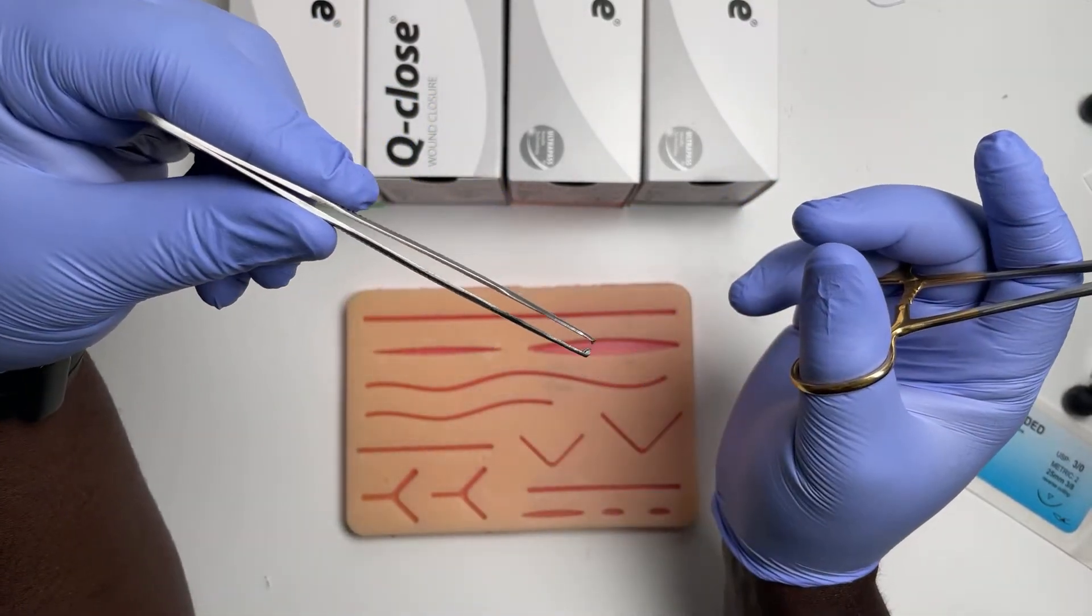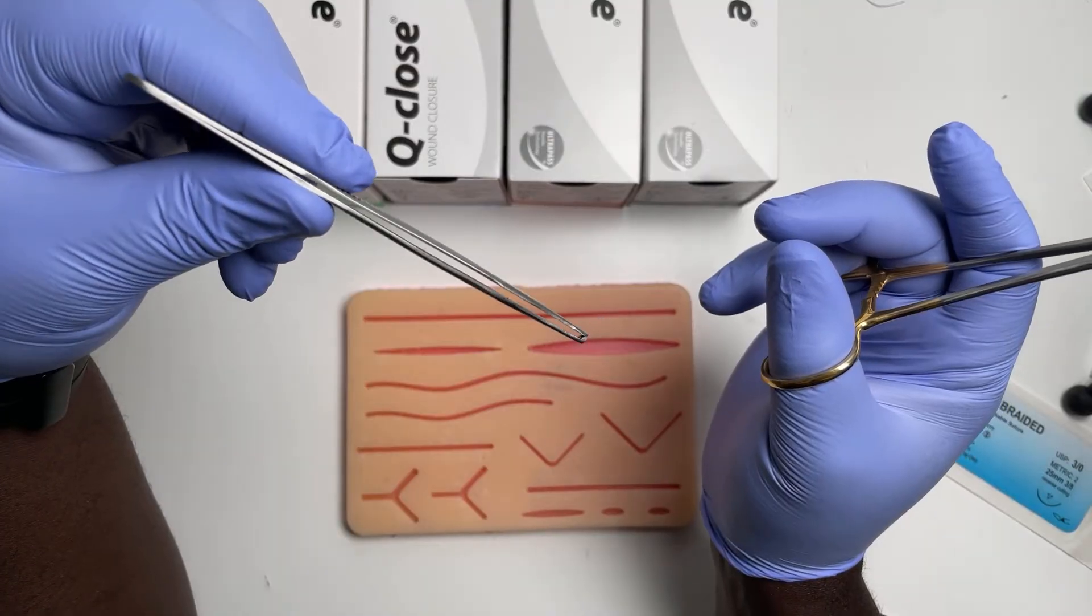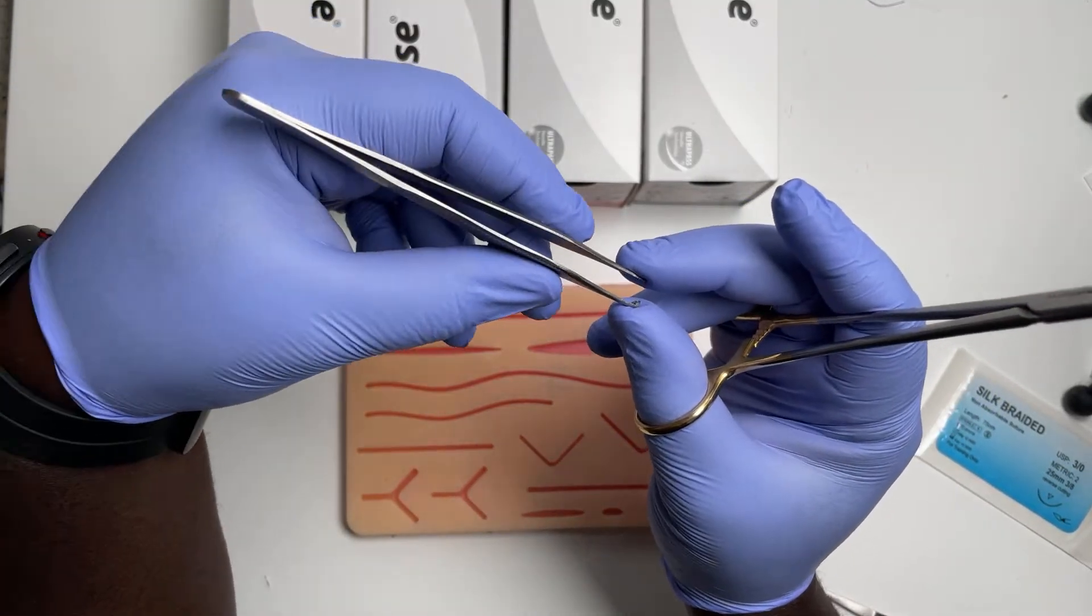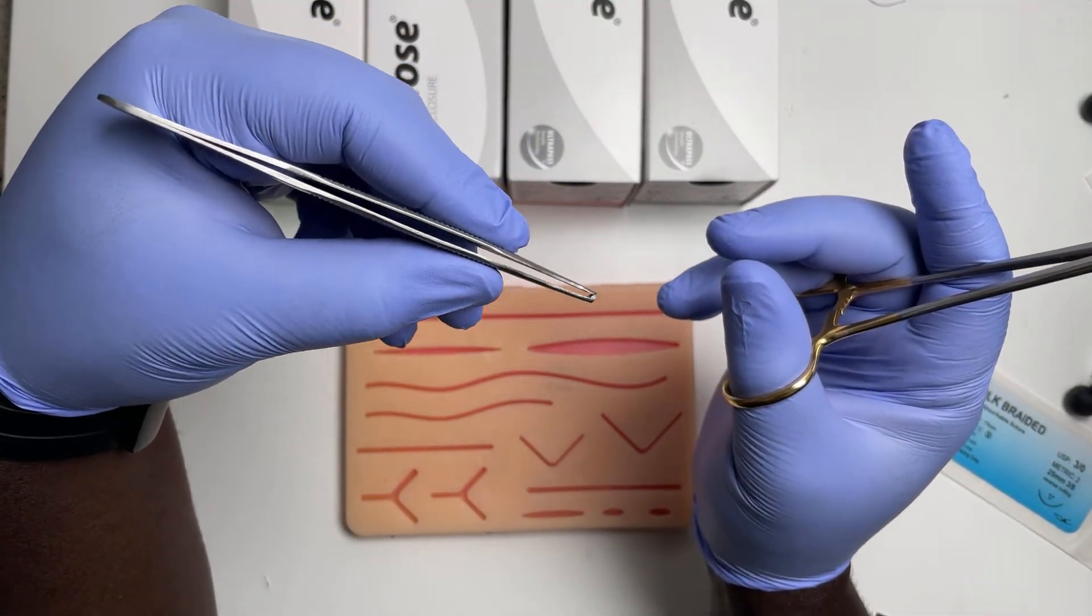If you hold it up here, you have to apply a lot more force to get those teeth closed. If you just hold it down here, you have the mechanical advantage.